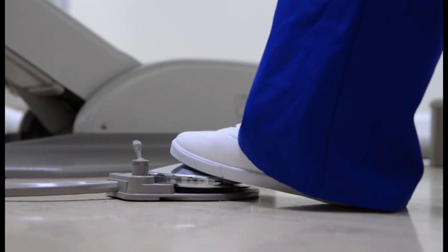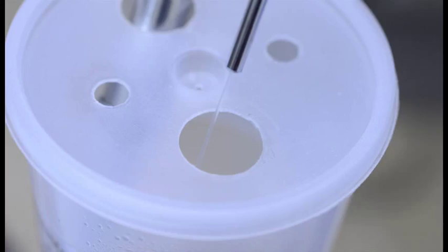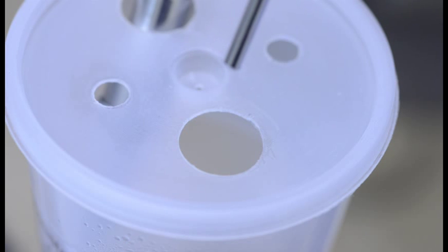Press the foot control, making sure that the water toggle switch is on. Next, take your air-water syringe and activate the water button in the assistant. When water is no longer dispensing, you have completed the air purge step.